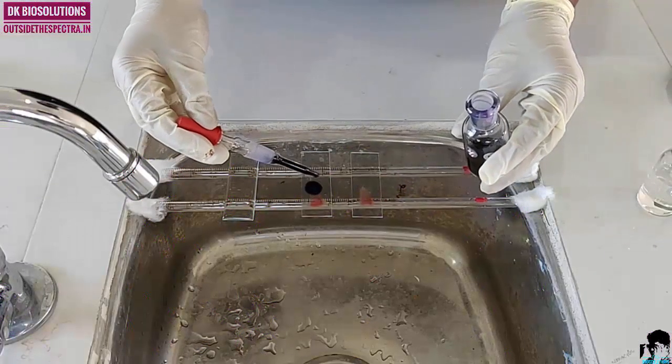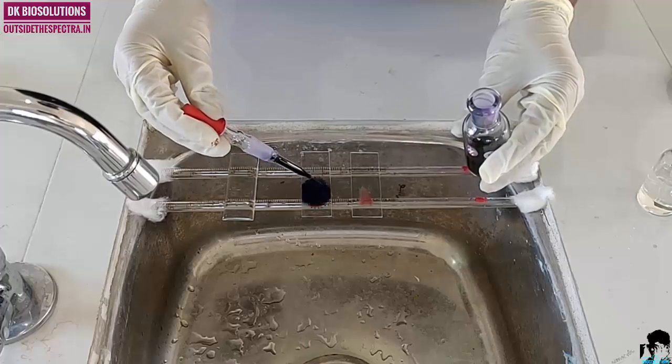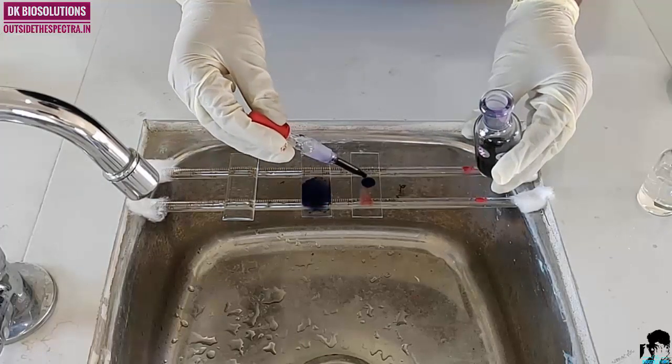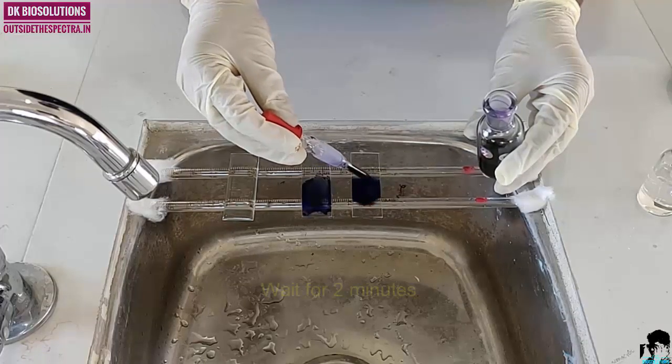Add sufficient amount of stain with the help of dropper on the blood film. After adding stain, wait for one to two minutes to allow proper fixing.